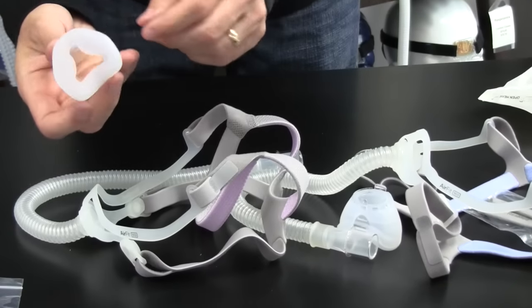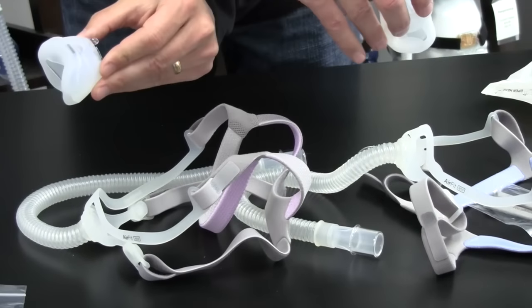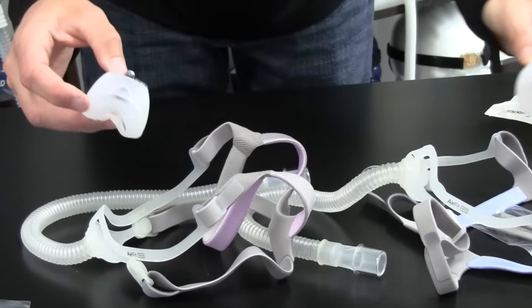The cushions are interchangeable. So you can take this small size cushion, and here's the standard size cushion, and you can switch them. The frames are the same. The cushions can go into either one.